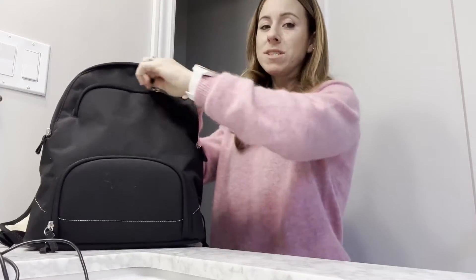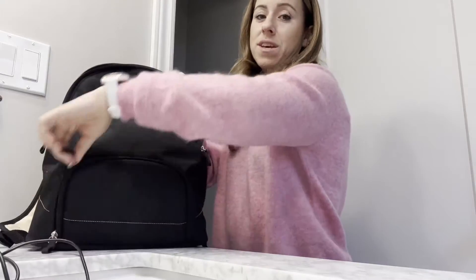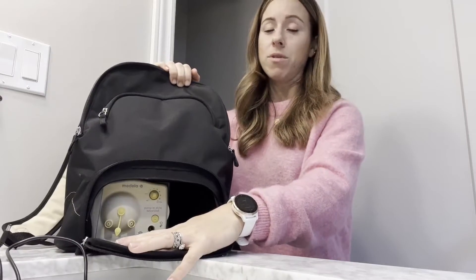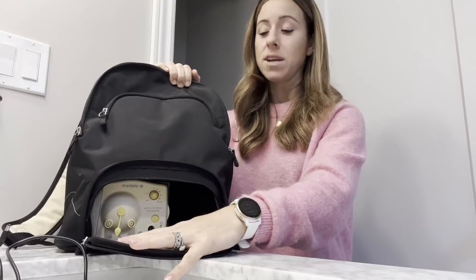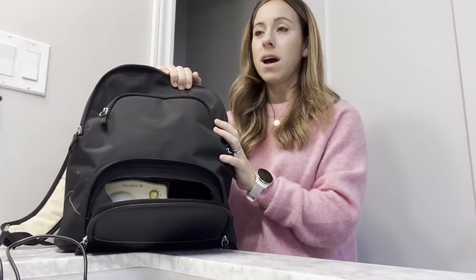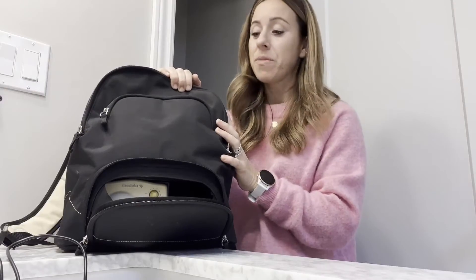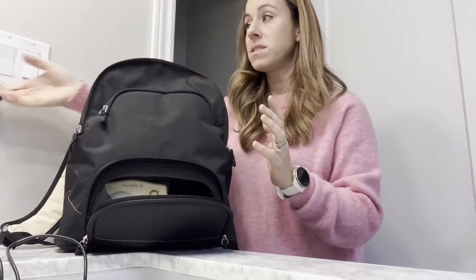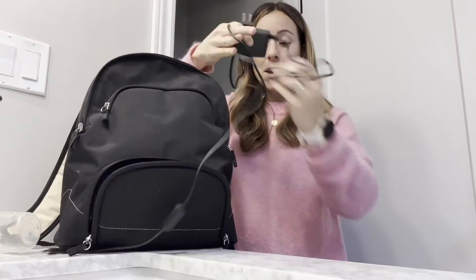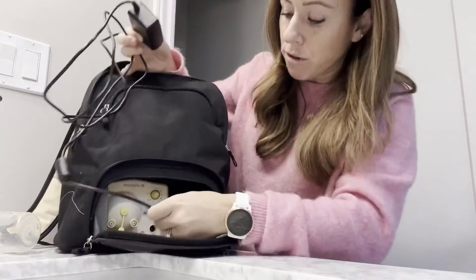I love the storage space — I could just stick everything all in one place. But the main reason I bought this was for the breast pump. It works incredible and is so easy to use. For all of you breastfeeding moms out there, this is one that I wish I had with all my kids.